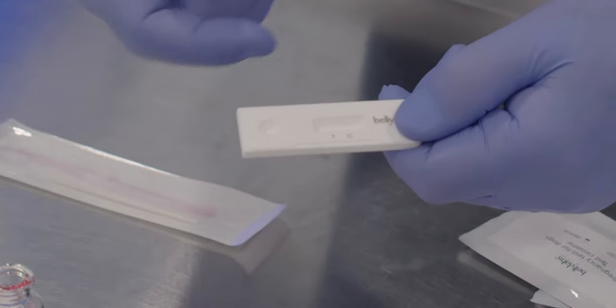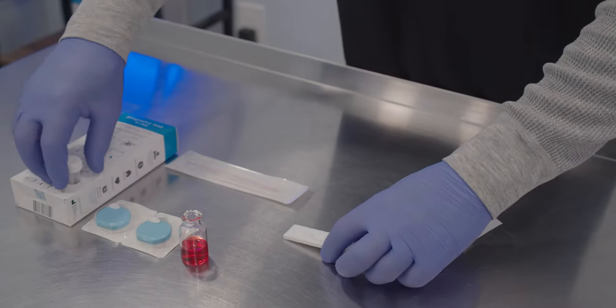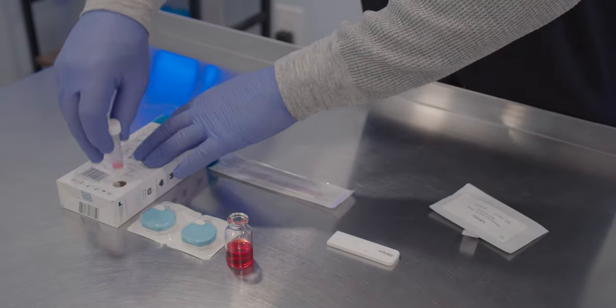Now that we have our buffer sample solution mixed, we take the buffer tube, flip it over, and take the small cap off.